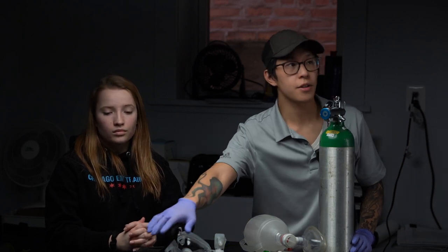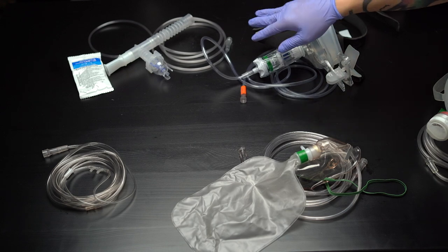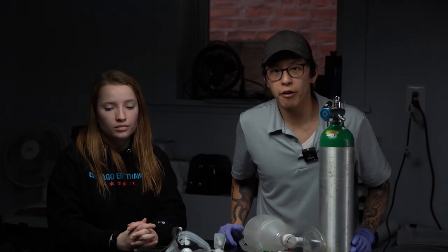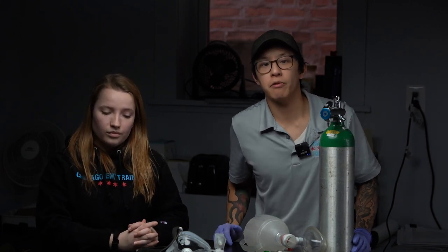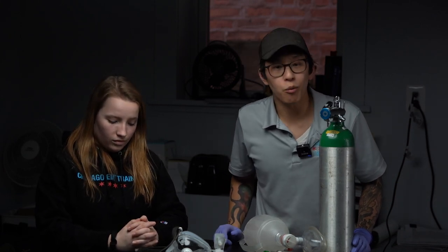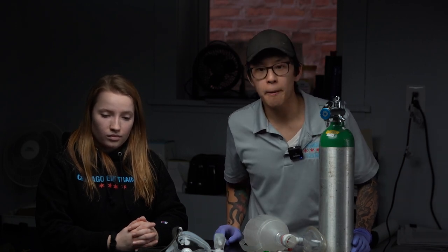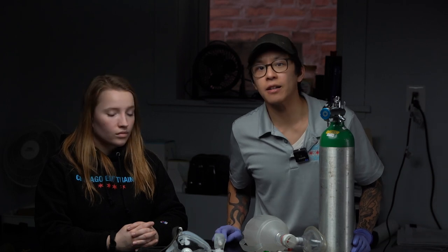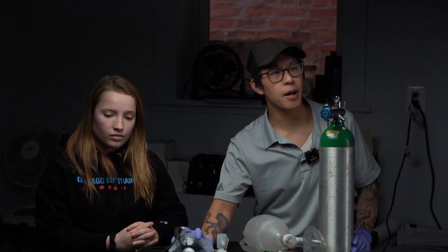The third indication is if we hear wheezes bilaterally. We would initially jump to the nebulizer kit with 2.5 milligrams of albuterol and 0.5 milligrams of atrovent. If we do that one more time with just 2.5 milligrams of albuterol for the second round and reassess five minutes later, and lung sounds are still wheezes bilaterally, we can utilize the CPAP device.